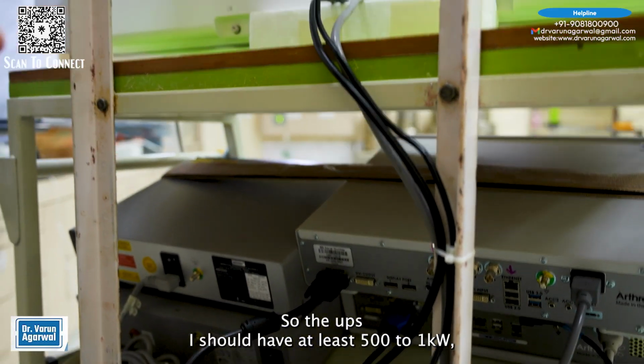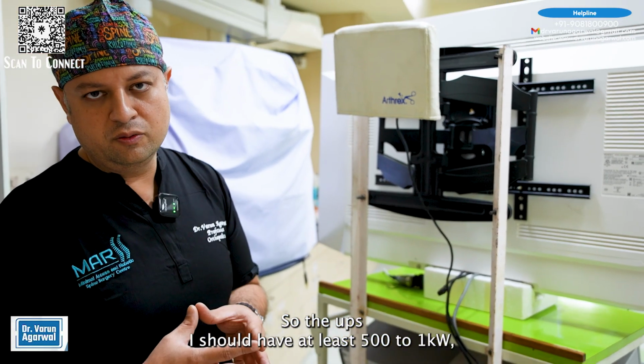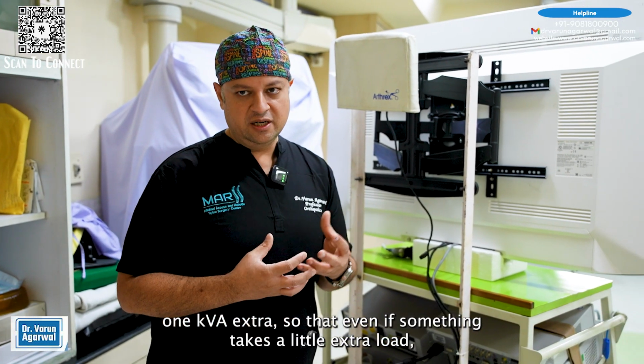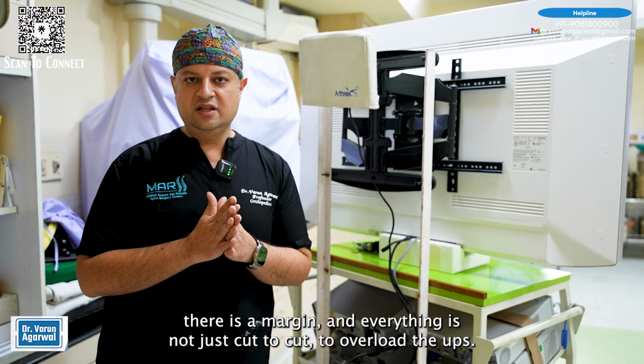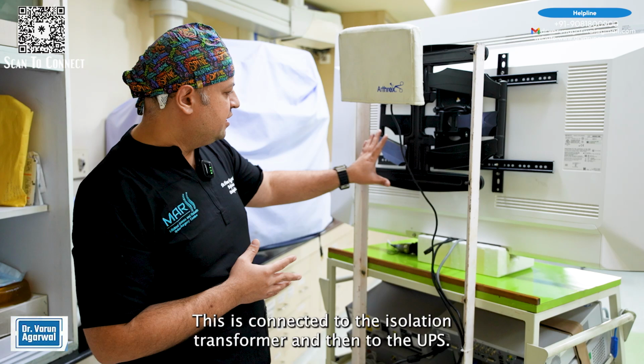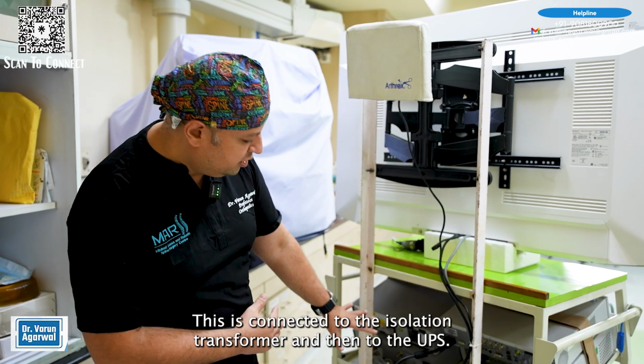So for the UPS, I should have at least 500 watts to 1 kilowatt, 1 kVA extra, so that even if something takes a little extra load, there is a margin and everything is not just cut off by overloading the UPS. This is connected to the isolation transformer and then to the UPS.